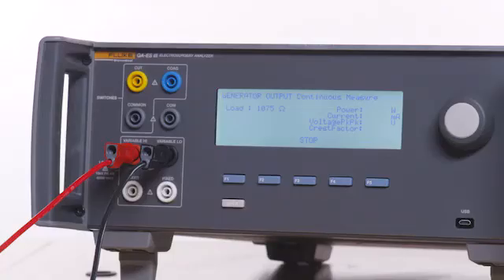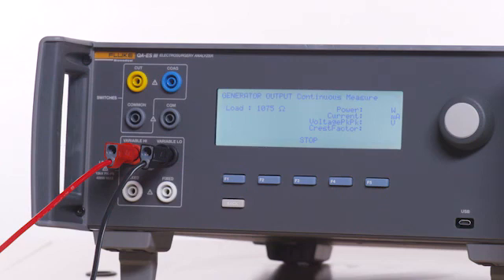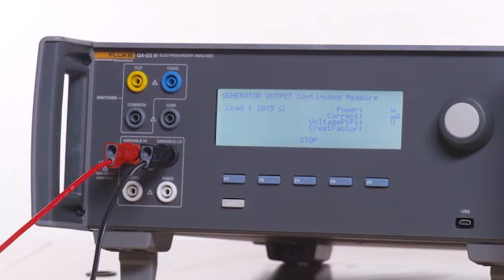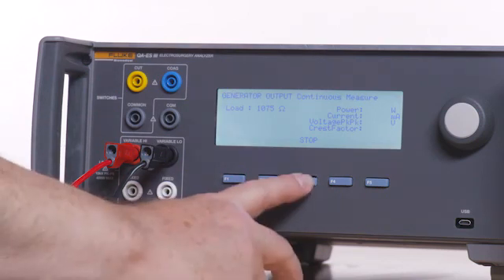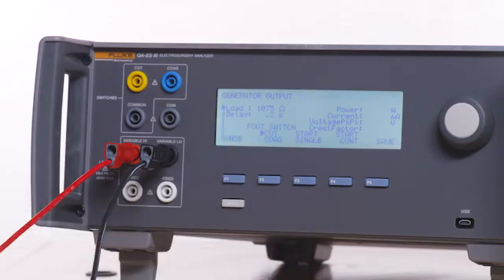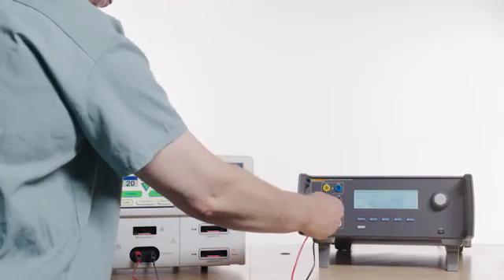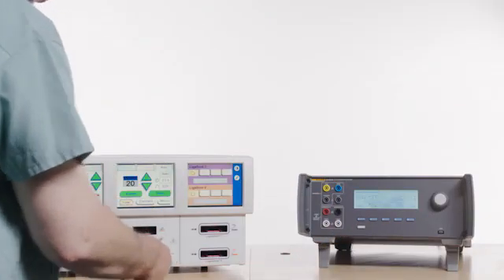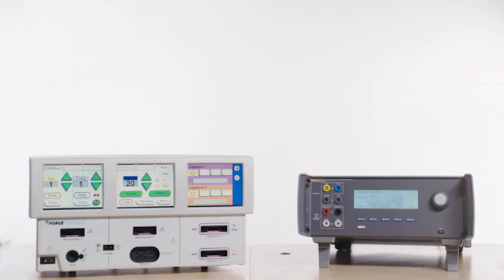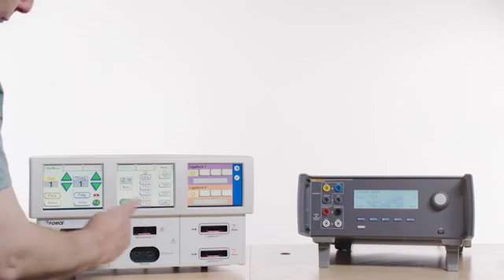Verify no RF generation occurs at 1075 ohms. Press F3 on the QAES3 to stop. Disconnect all test leads, then disable the auto bipolar function on the Force Triad before continuing.